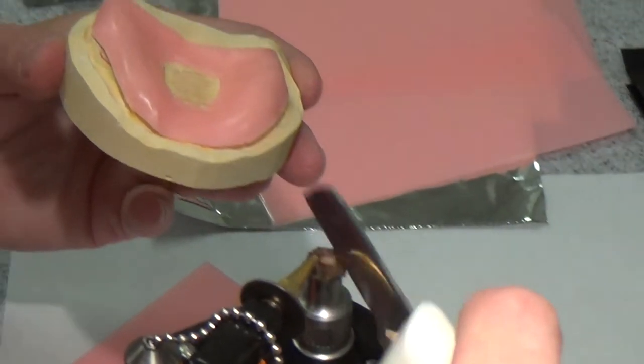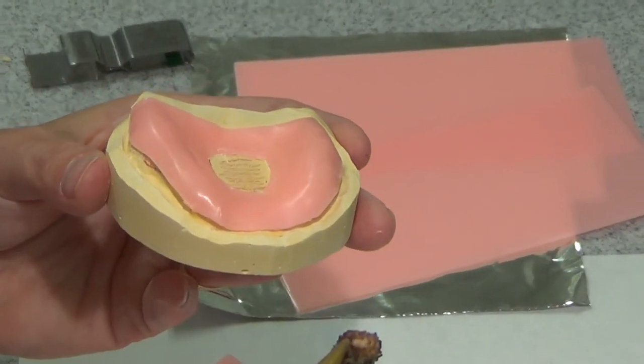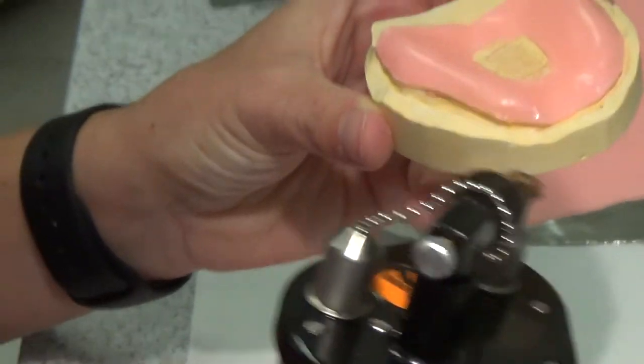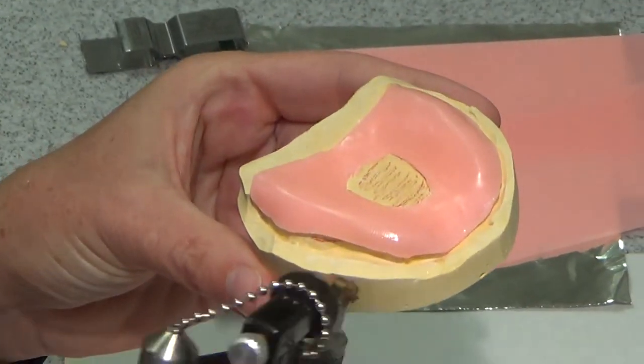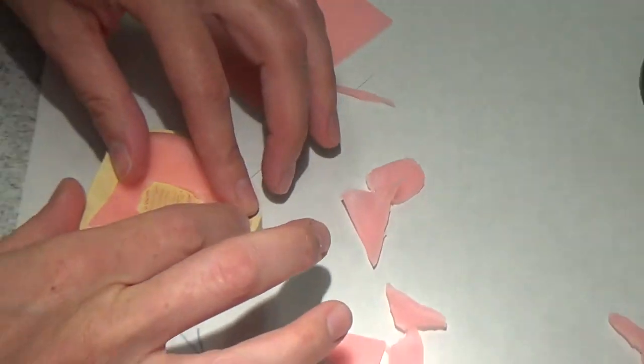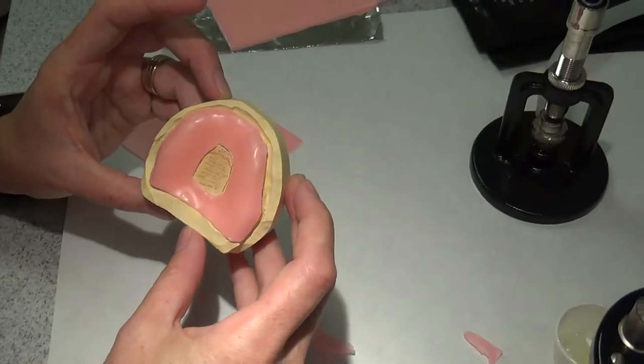My wick is a little high, keeping me from getting a good flame. So once I heat this up a little bit, I'm just going to heat it up everywhere and re-adapt it with my hand until I'm happy with it. So I'm happy with that one.